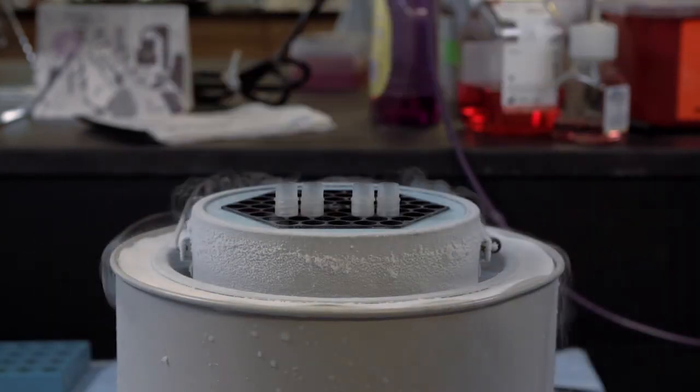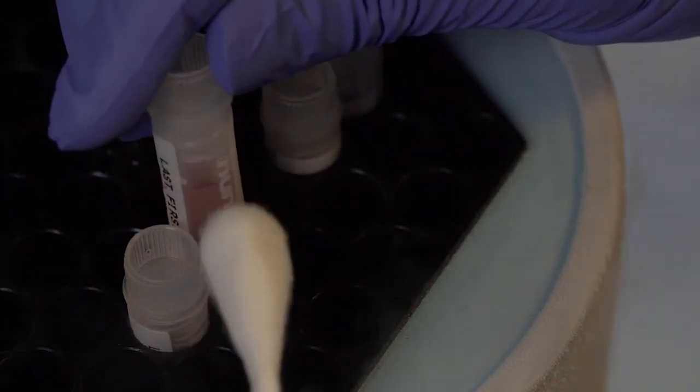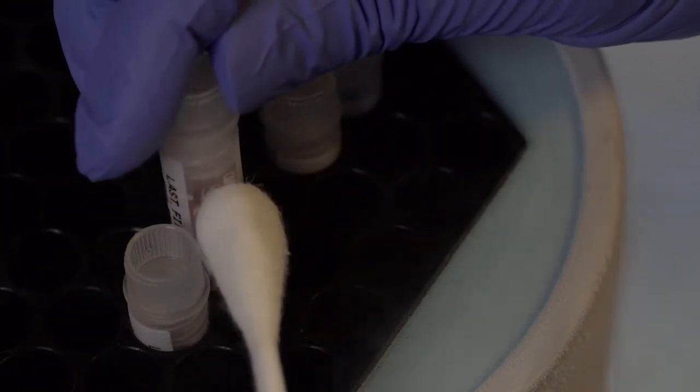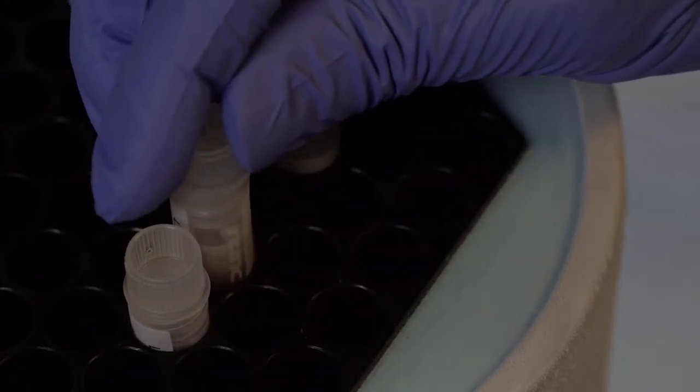The seeding technique is done manually and the easiest way to do this is to use a large cotton swab that has been immersed in liquid nitrogen. You can clearly see the seed this way, and it can be done rapidly.